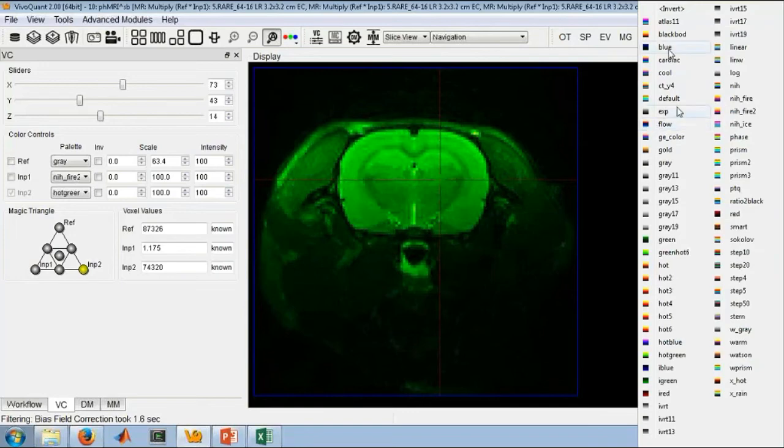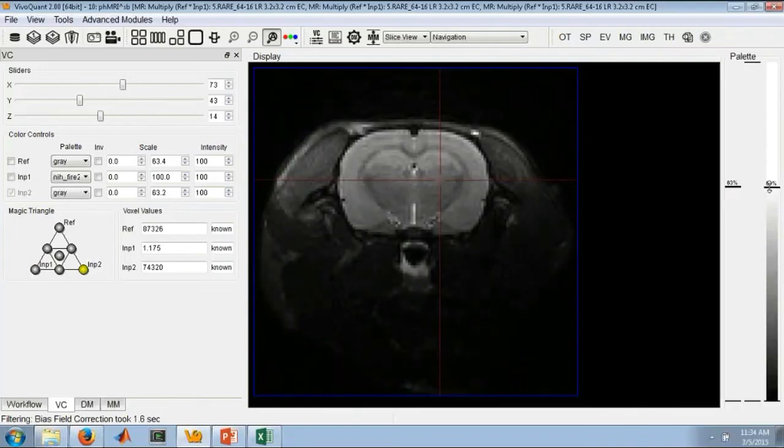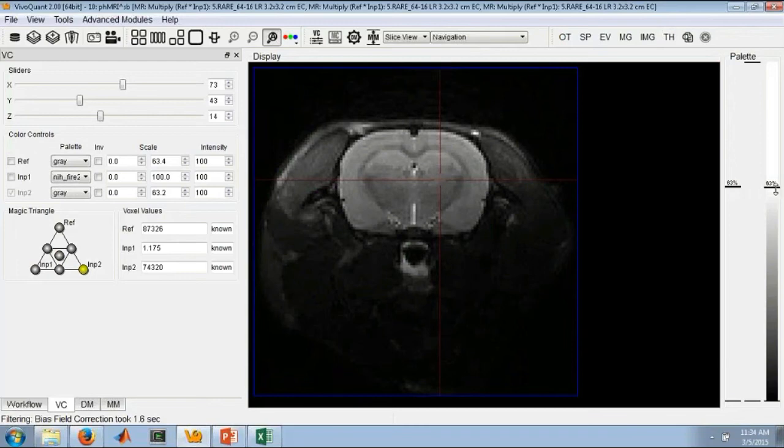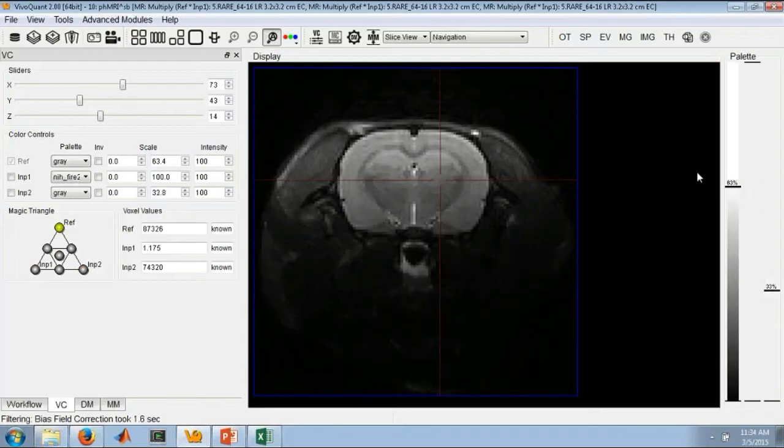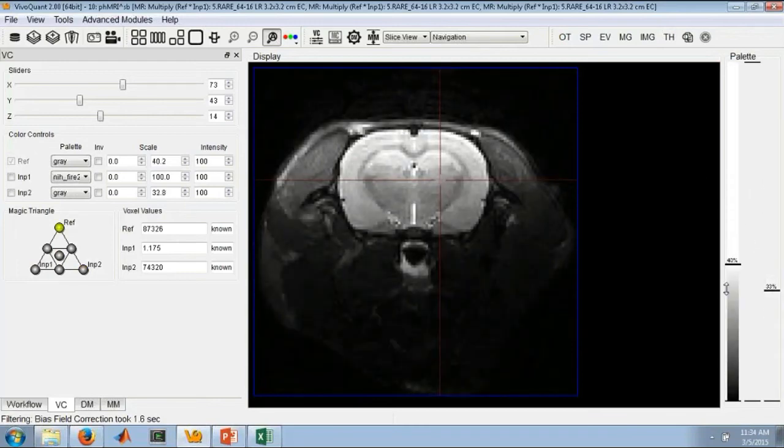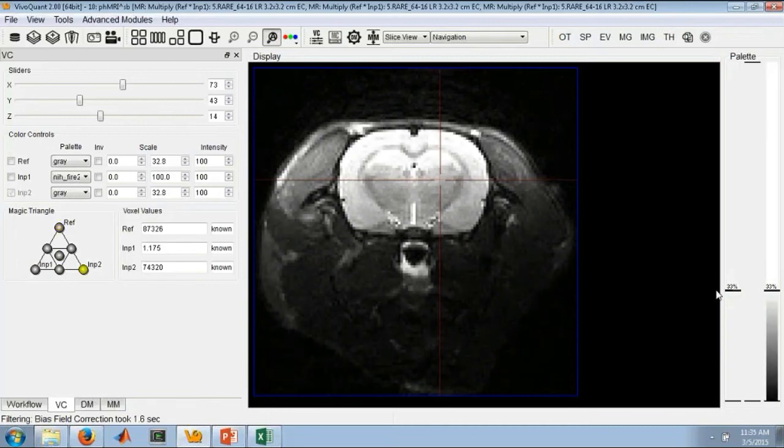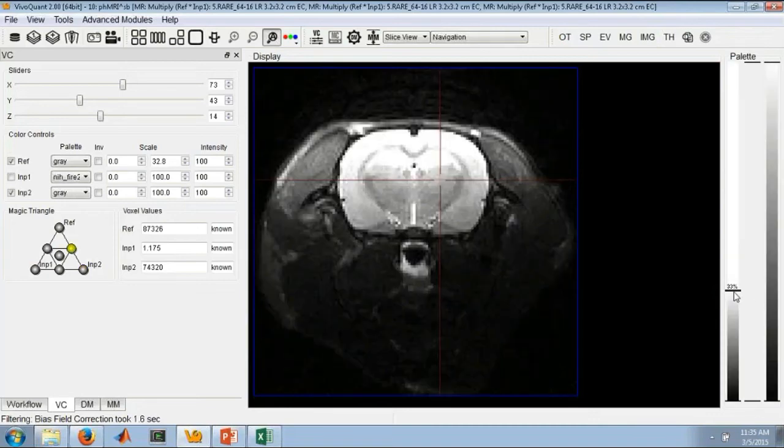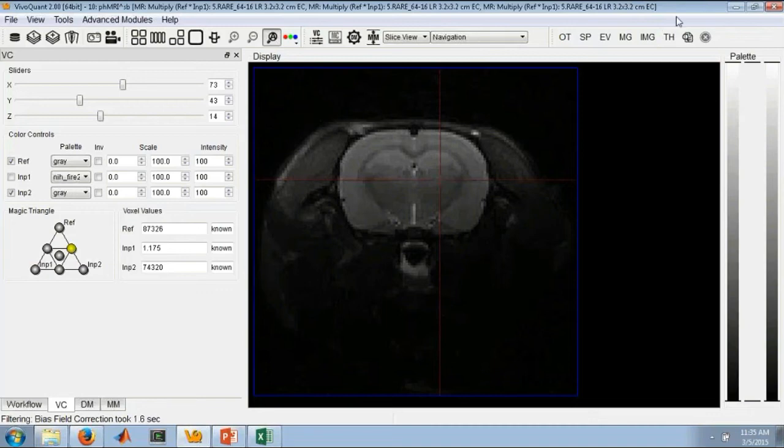I'll switch it to gray. And now if I pull this down, it's the same or similar color palette as the original. I switch that back and forth and you can see that we need to go a little bit brighter. So much of this bias has been corrected, and it's a more smooth transition of brightness throughout the image now. This image wasn't terribly bad to begin with. However, the tool can also correct for much more elaborate biases or a much larger difference than we have in this particular image.